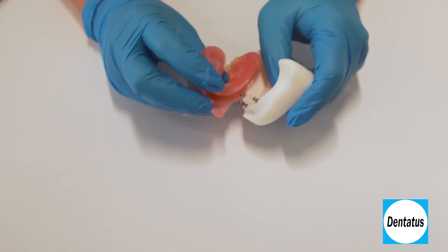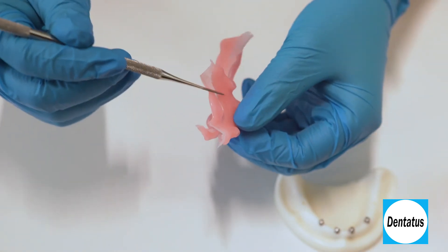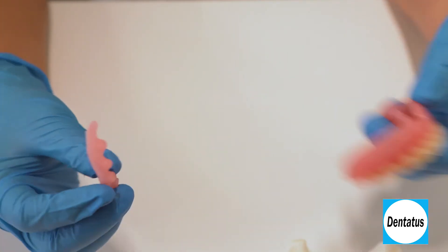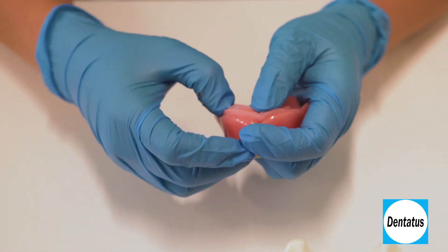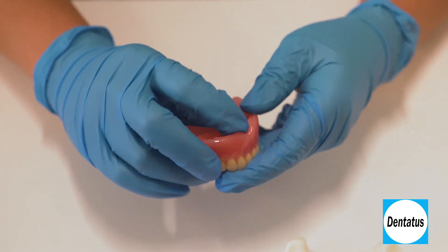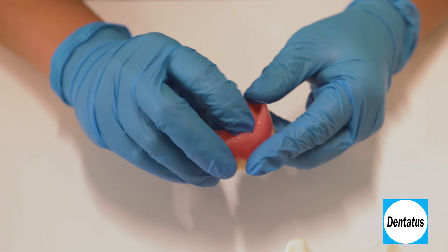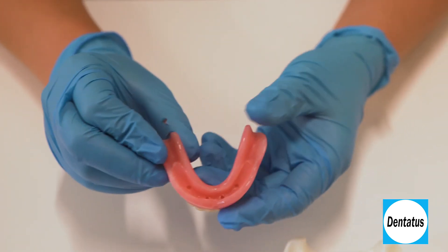Carefully remove the silicone liner from the denture base. Trim the flash with scissors along the well-delineated seam line, then reinsert the liner into the prepared denture. There should be no edge of the undercut protruding. Depending on variable conditions, the TuffLink silicone should maintain its resiliency for 18 to 24 months. Liners can be replaced quickly without preparation or adjustment in the denture base.